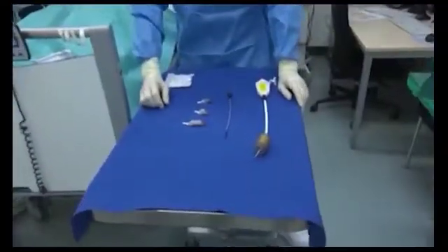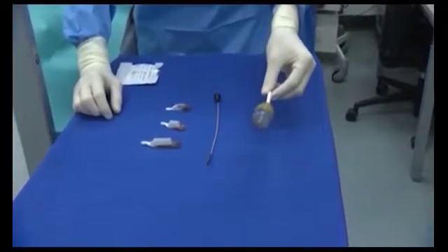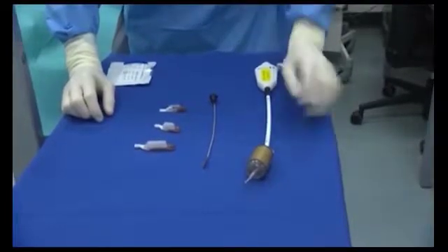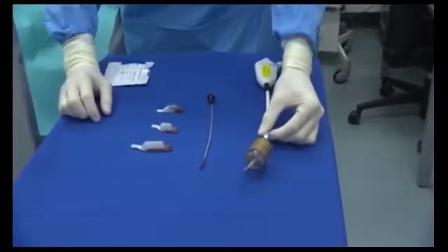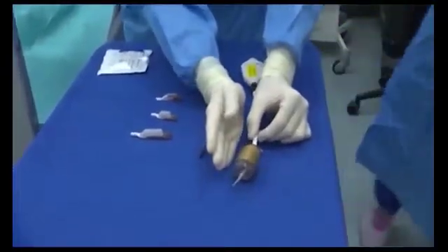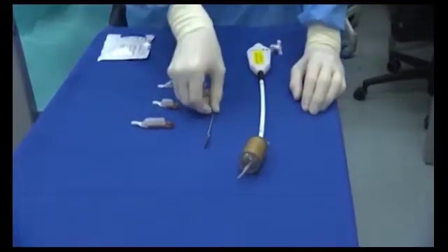This is our table with the armory, so to speak, that we have. Here we have the express catheter — or previously the Halo 360 — for longer lesions that may be circular. It can ablate the mucosa circularly all around, and you can relocate it step by step from top to bottom and reinflate it repeatedly, so that you can achieve ablation of very long segments.